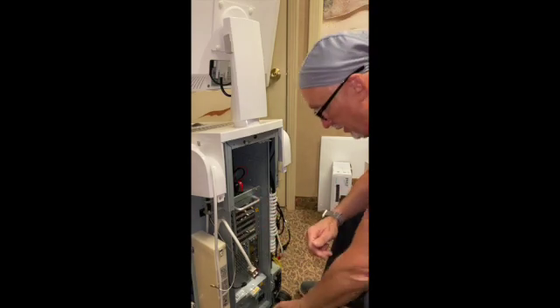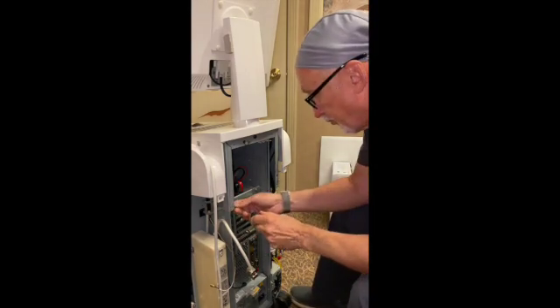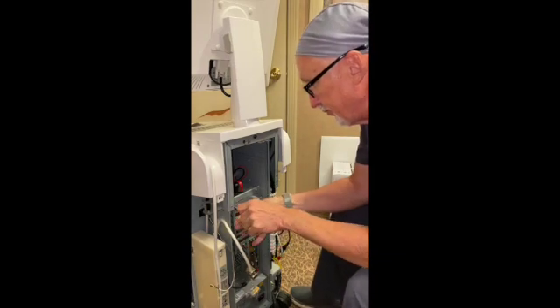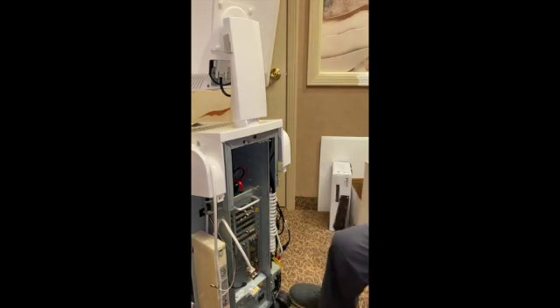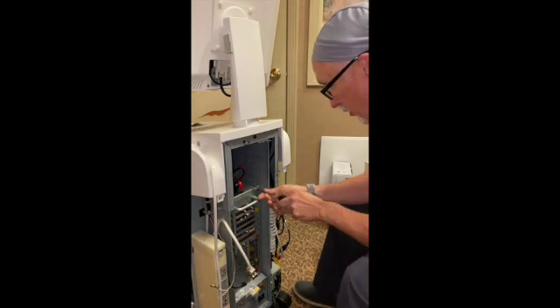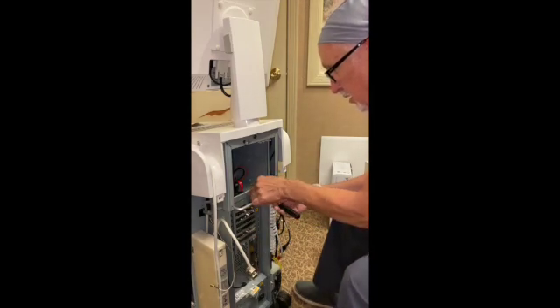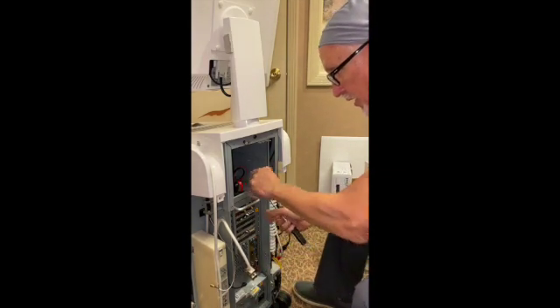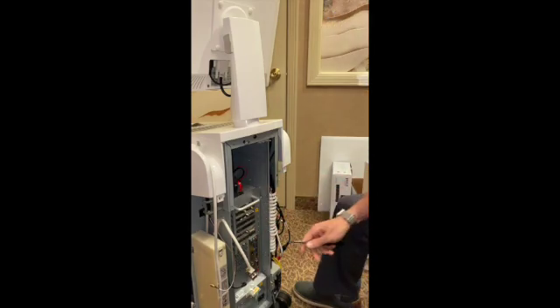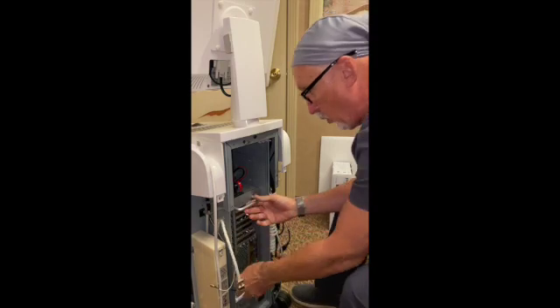Now you're almost there. Typically there'll be two screws here and two here — this one again is missing two of those screws. And that again is the T20. You'll undo these screws and set them aside. Then you go down here and undo that screw and that screw. At that point you lift this plate off, and then we can slide this whole chassis out of here.